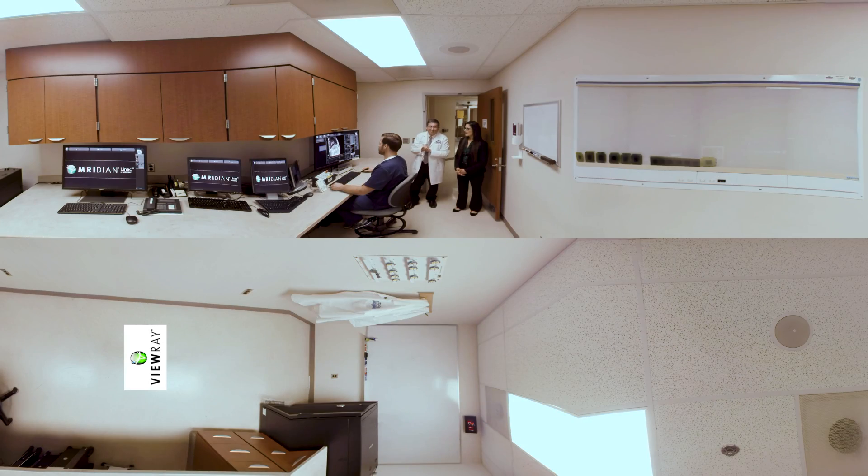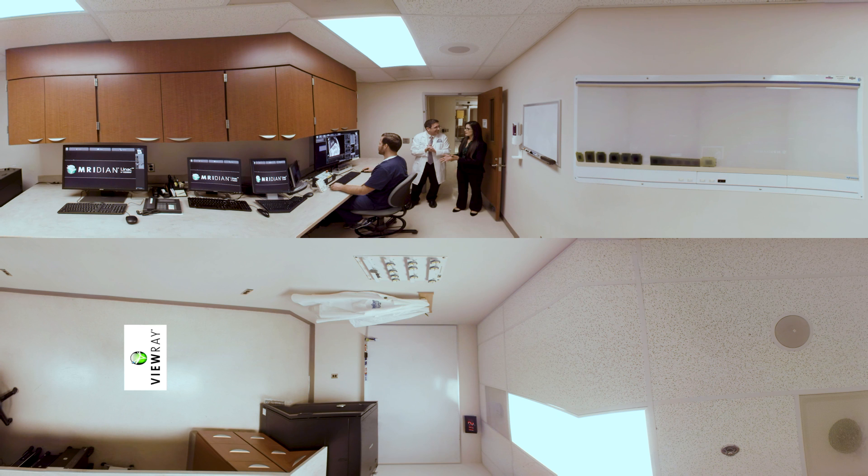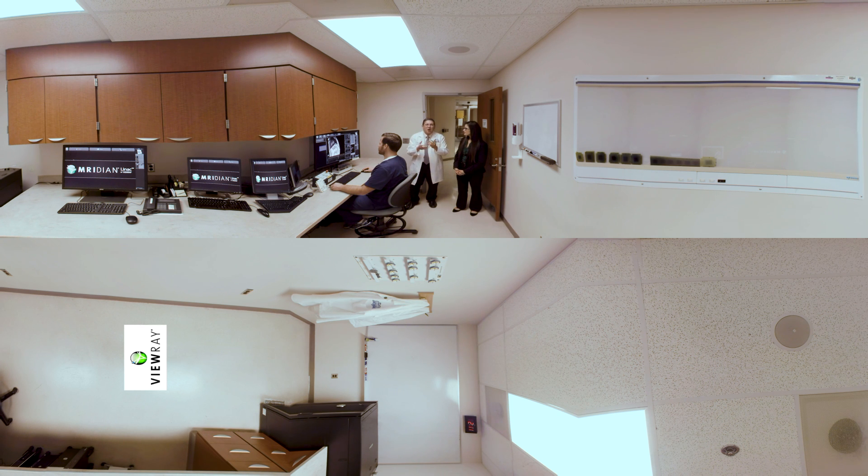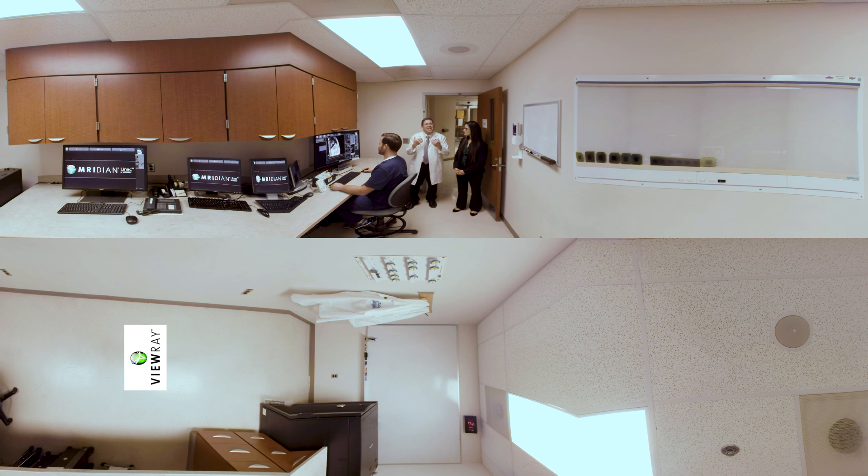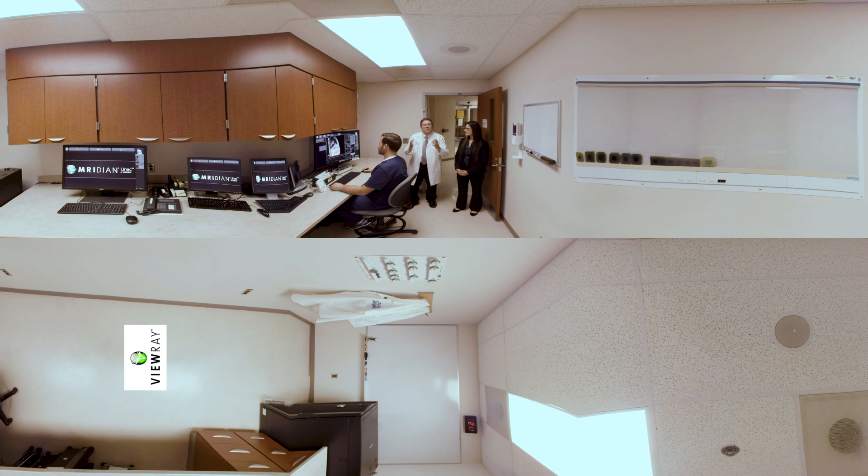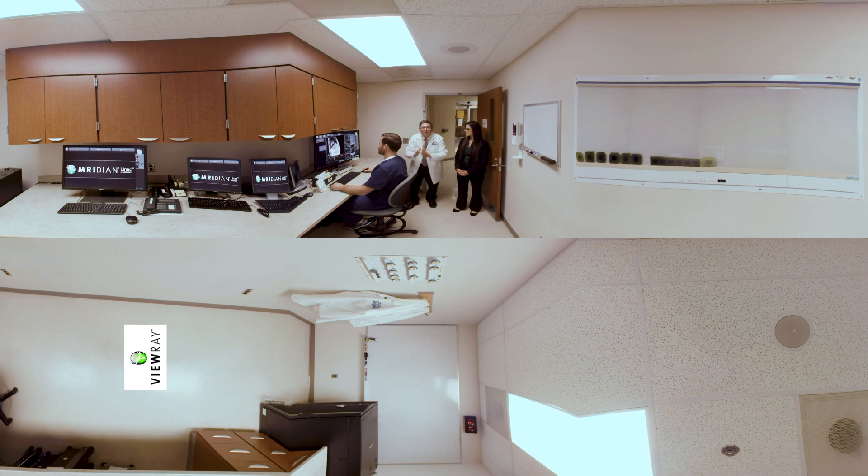And during this treatment, what does the patient experience? The patients are comfortable and they are able to lie on the machine and be relaxed. And when they're done, they go out and do whatever else they were going to do the rest of the day.